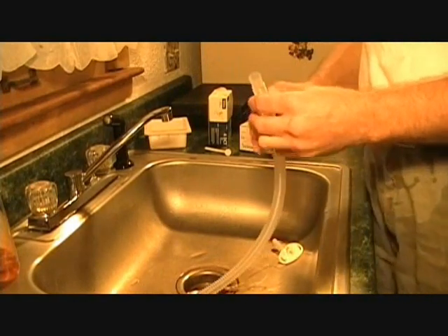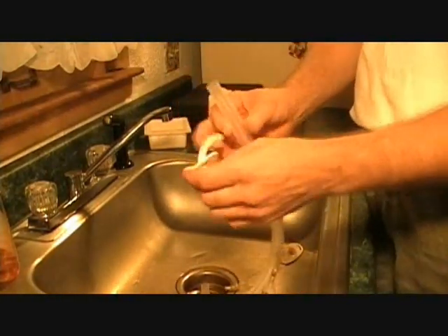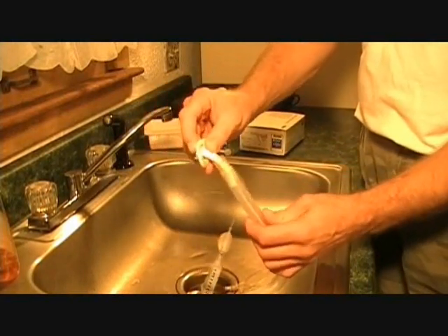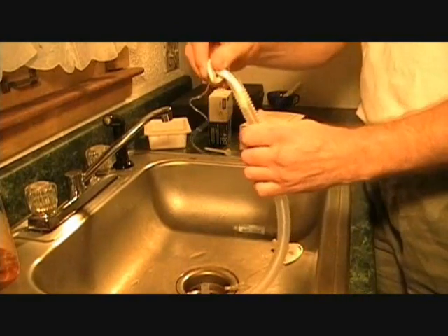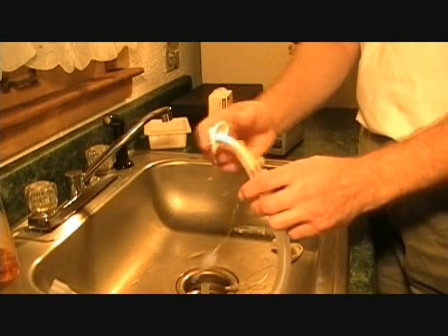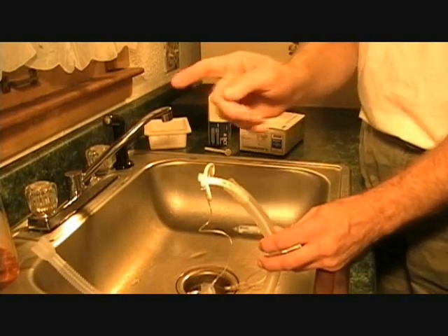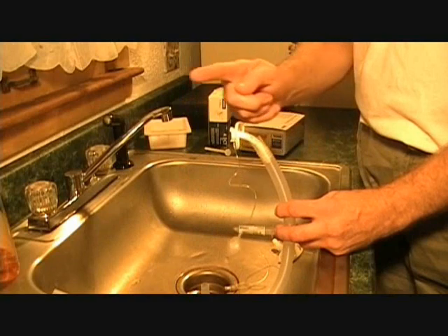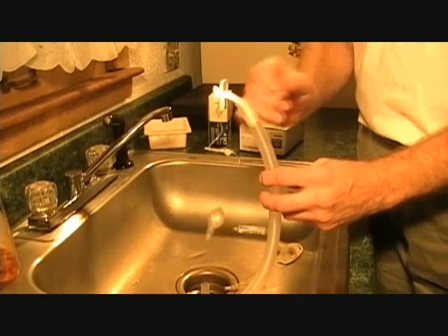This tubing in my right hand represents the human trachea. I'm inserting the tracheostomy tube into the so-called trachea and then inflating the cuff. The cuff is tight enough to hold it in, but that's not the purpose. The purpose is to make positive air pressure go down the trachea and not up out the mouth, so that the lungs fill with air instead of the mouth blowing out the air that the lungs desperately need. That's why you're using a ventilator.